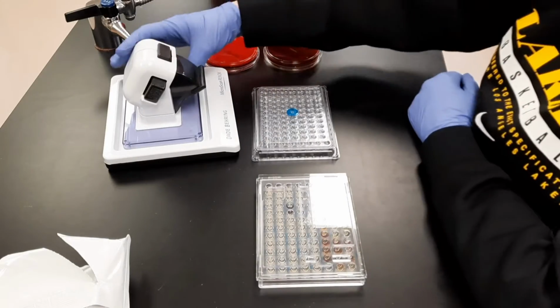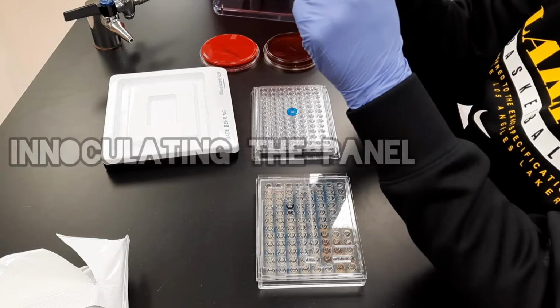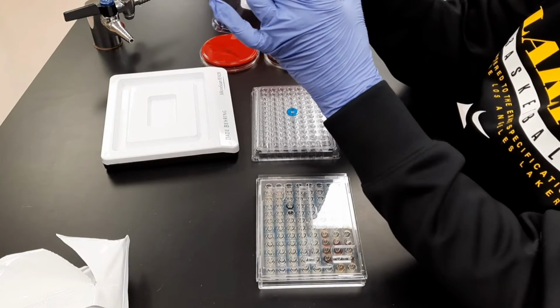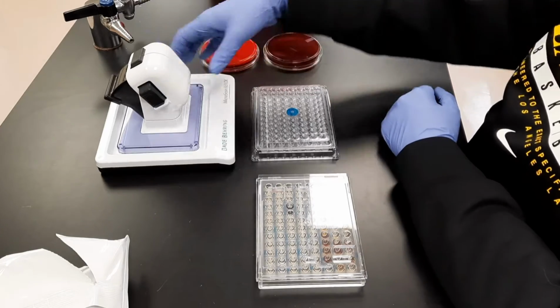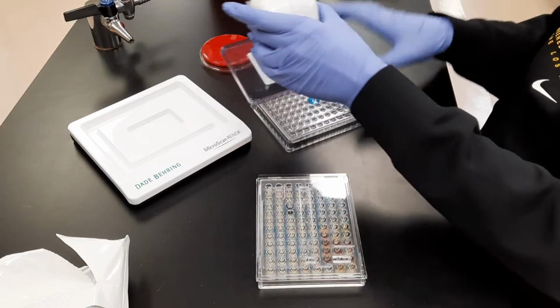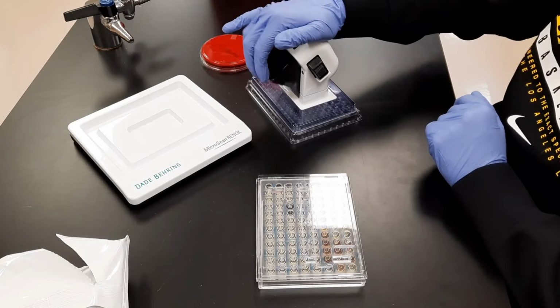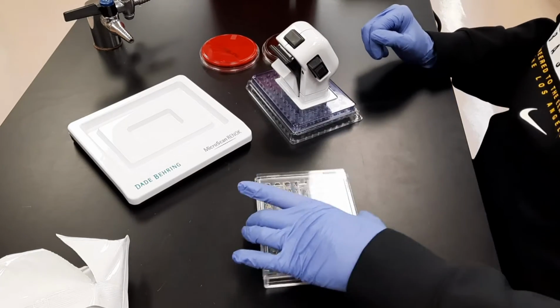Now, place the RENOK on top of the transfer lid and depress the pickup levers using your thumb and fingers. Fully lift the center lever to draw the inoculum water into the transfer lid, then release hand pressure. The mechanical catch will hold the center lever in place.